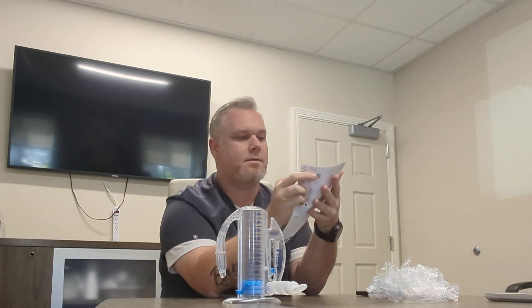What you want them to do is document how they do. This is a chart for seven days - you set the target for them, they take the breaths, record the maximum breath over 10 breaths, and give themselves a check with their initials. You've got seven days worth. Can you do it for 14 days or a month or the rest of your life? Sure. What's the point? To prevent complications like atelectasis and pneumonia.